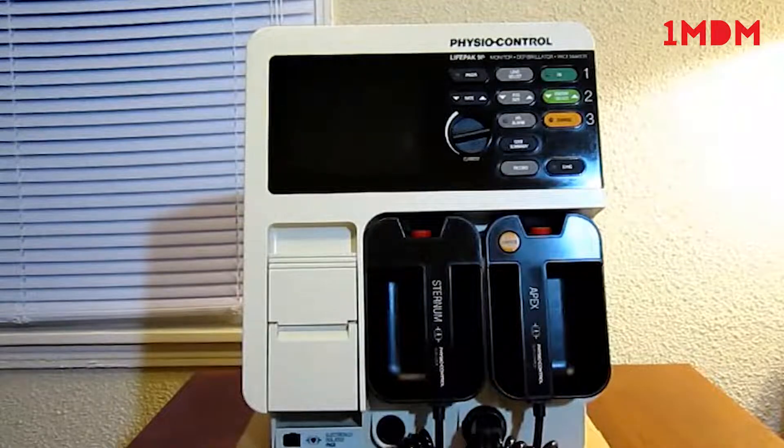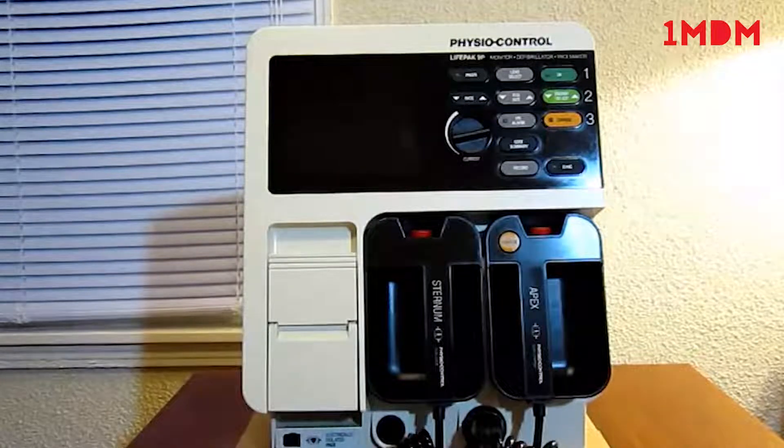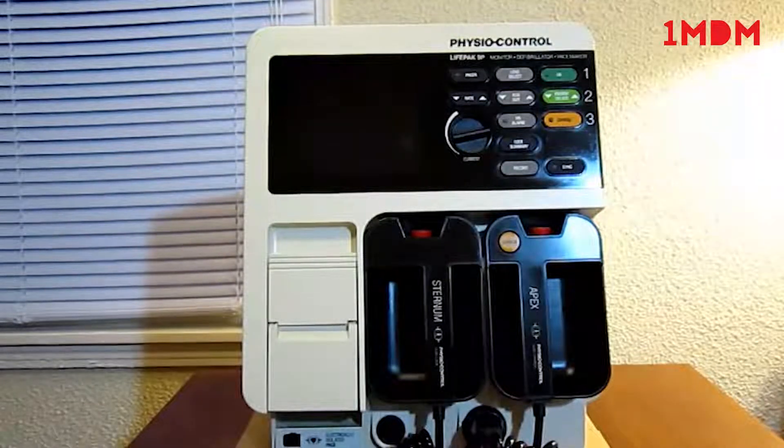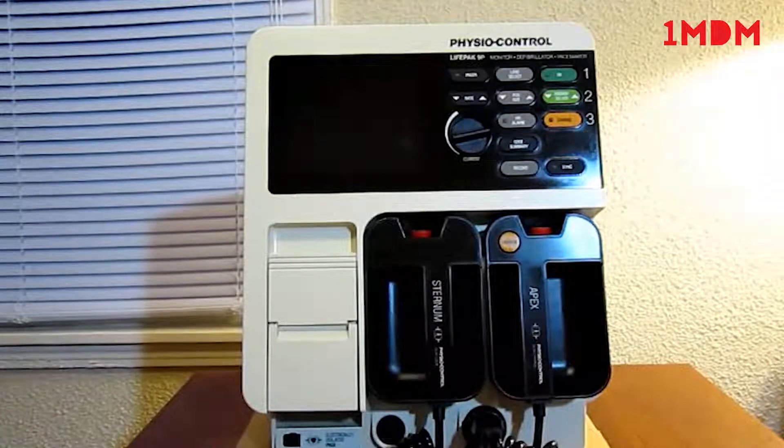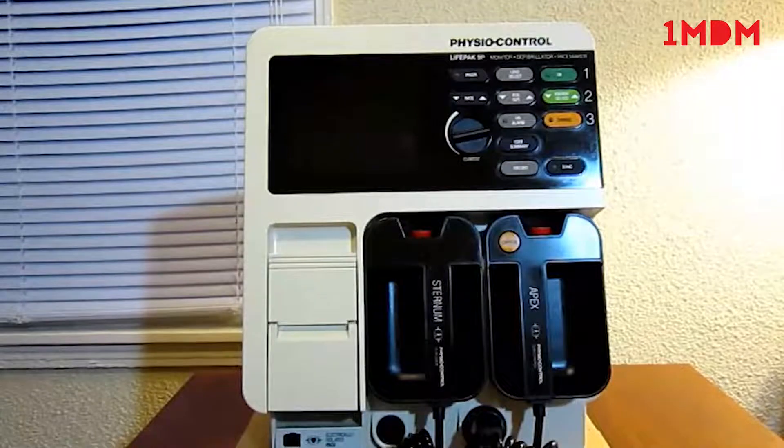Hello everyone. So this is the PhysioControl LifePak 9P monitor, defibrillator, and pacemaker. Today we're going to be doing an inspection and a function test.